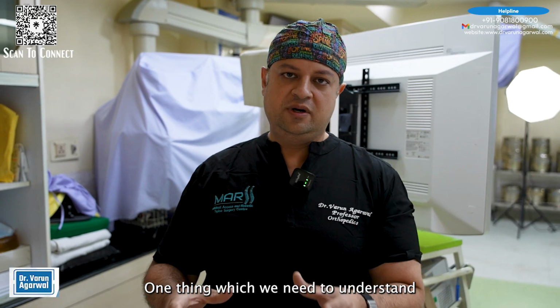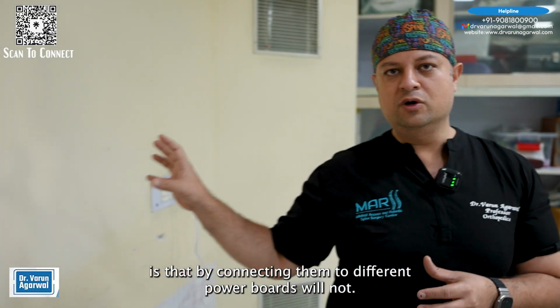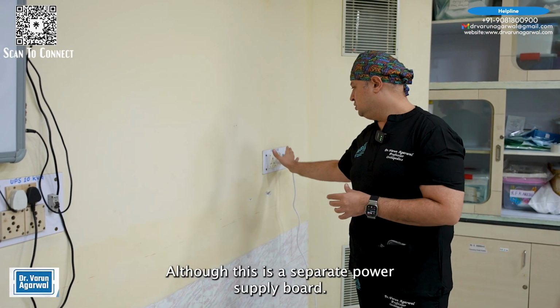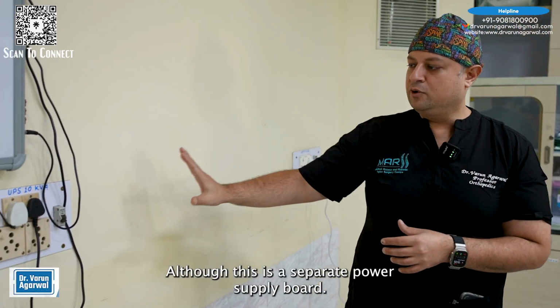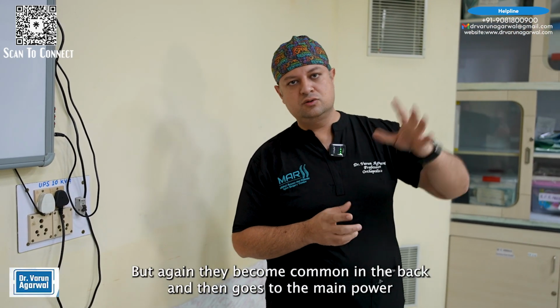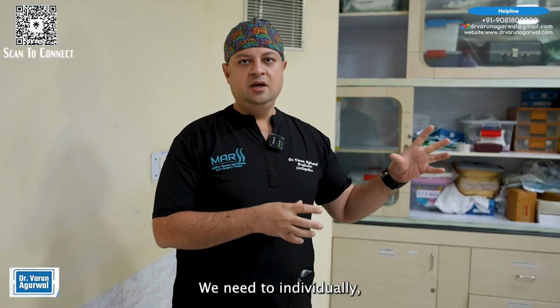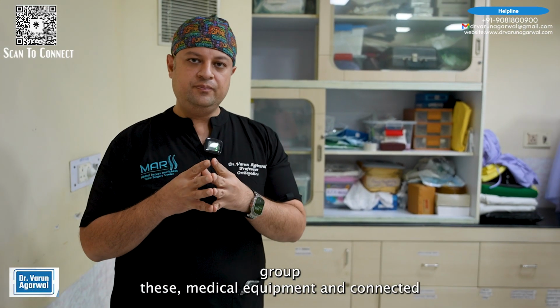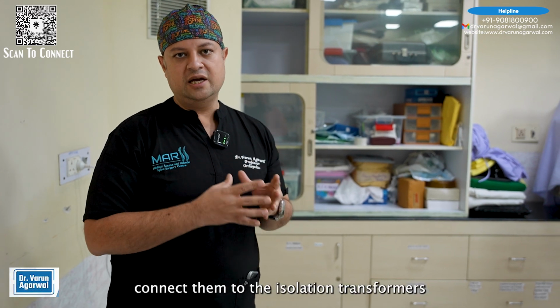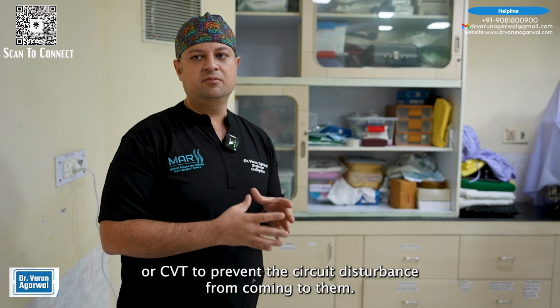One thing we need to understand is that connecting them to different power boards will not serve our purpose. Although this is a separate power supply board, and this is a separate power supply board, they again become common at the back and then go to the main power supply of the hospital. We need to individually group these medical equipment and connect them to isolation transformers or CVTs to prevent circuit disturbance from coming to them.